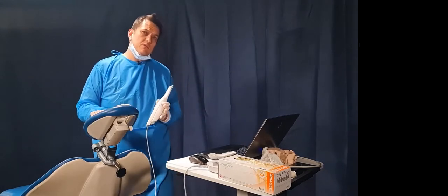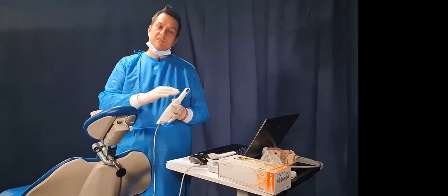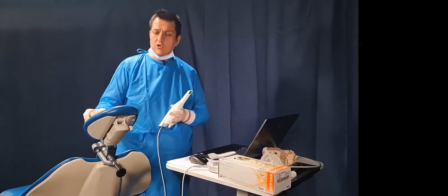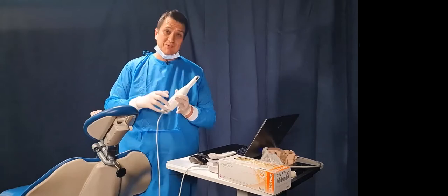Now I'm going to assume that you've already done the nuts and bolts. You've done the scaffold, you've done all your scanning protocol. We're going to really hone in not only on these undercut sections in this little section as well. Okay, let's jump into it.